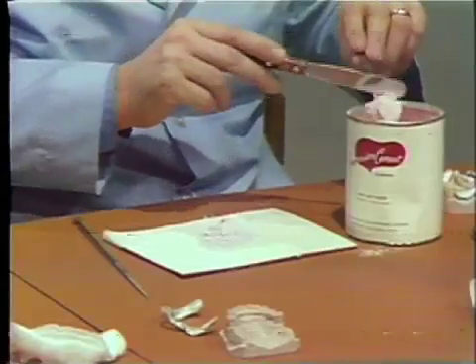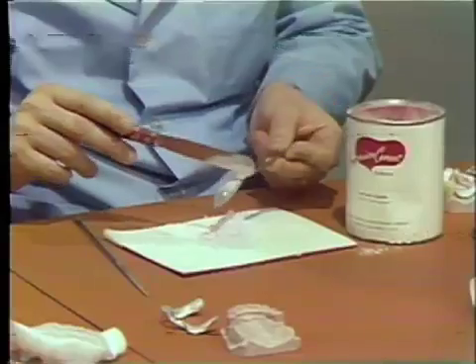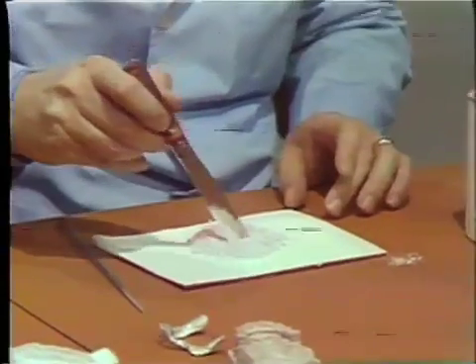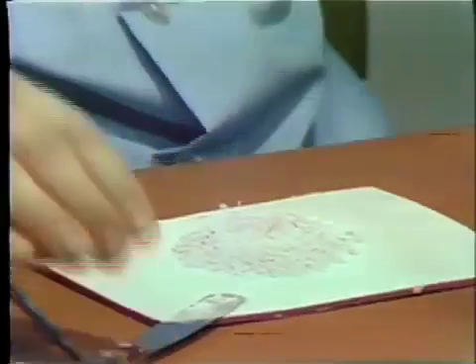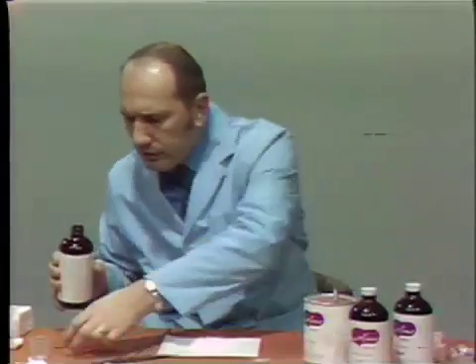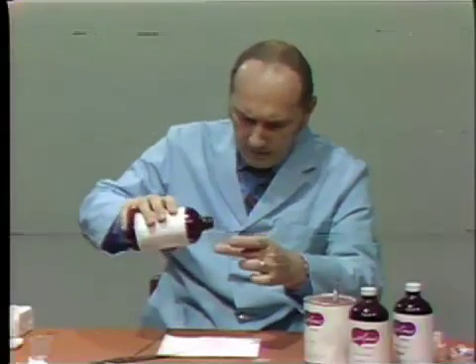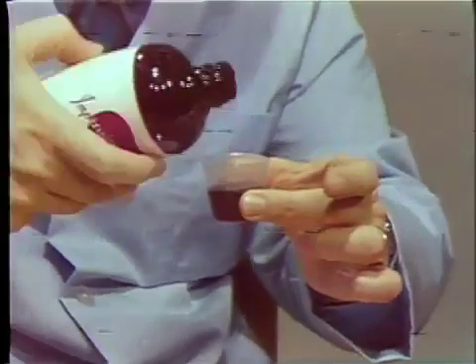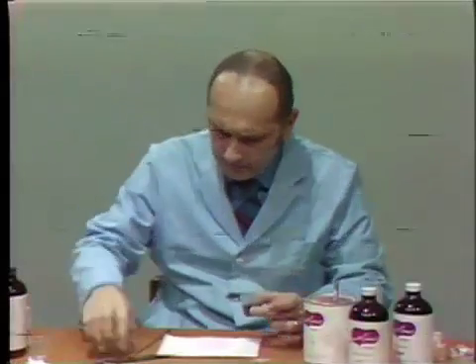It's wise to roll the can first to fluff the powder. Then, using level teaspoons, measure out the powder and make a little well in the center — just like mashed potatoes and gravy. For dispensing the liquid, use one of these medicine dispensing cups as used in hospitals, available from medical supply stores. You'll see the liquid is quite viscous, just like molasses. We'll be using three teaspoons — check the three teaspoon mark — and pour this into the very center of the well.